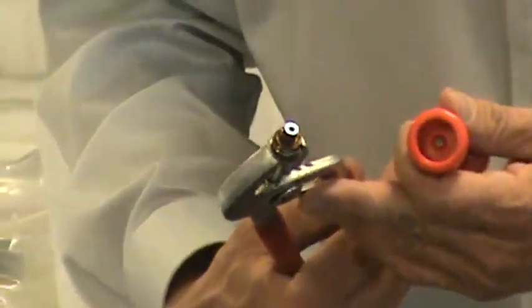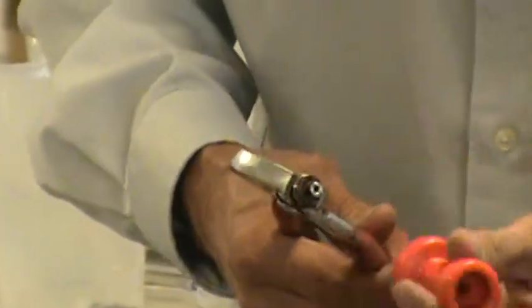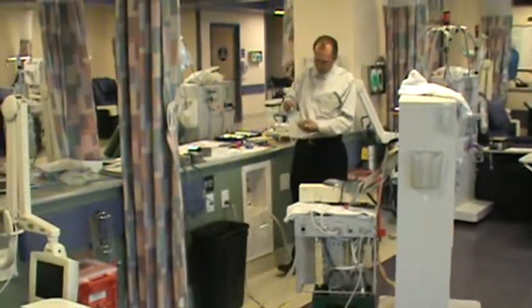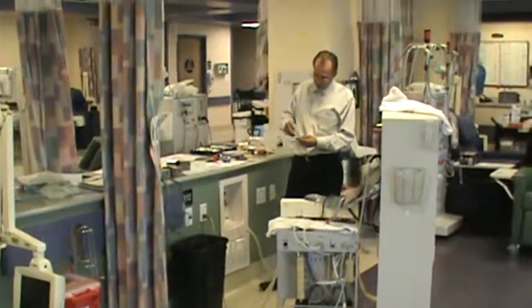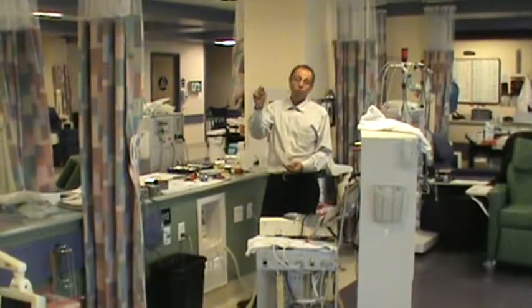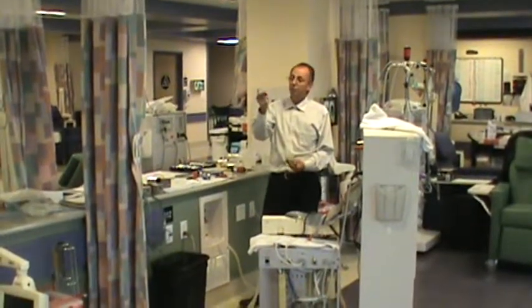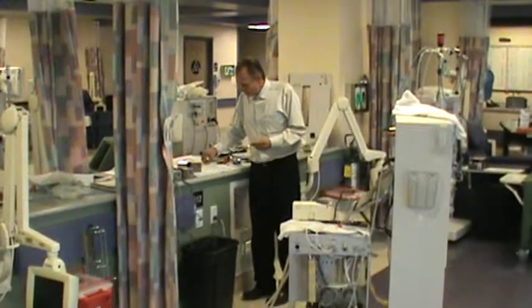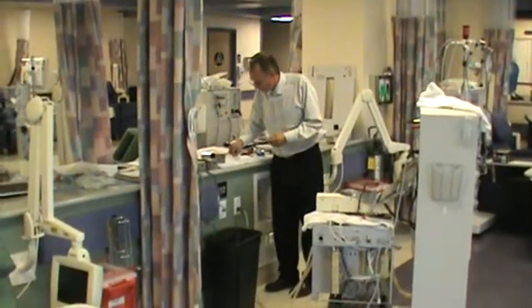As I look at this, I'm going to remove the one part that I need off of it, and simply dip into my spare parts bin, where we always have an extra acid spike for annual PMs. We almost replace these every annual PM — they're extremely cheap, and there's no reason not to replace them.